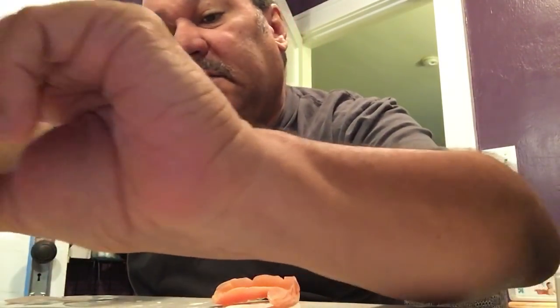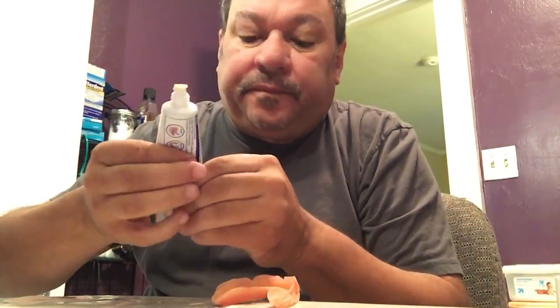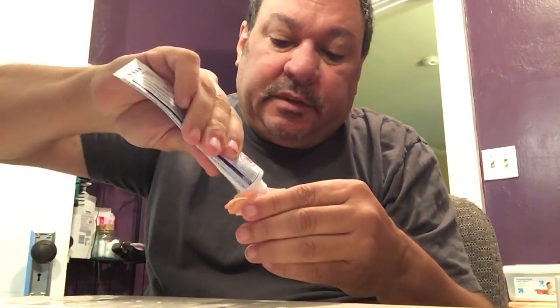I put just a little bit on top here — keep in mind it's dry — now a little more on top. This is the free side. Then I take a little water and just wet it — it's going to get wet in my mouth anyway. Let it drip, then put it in my mouth first. There's the top one, it's in.